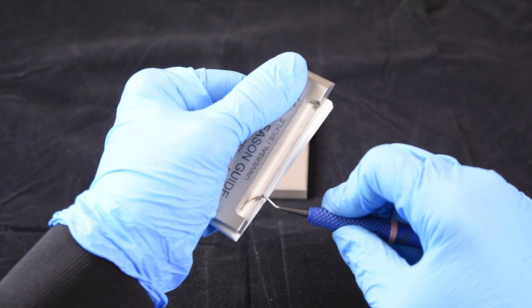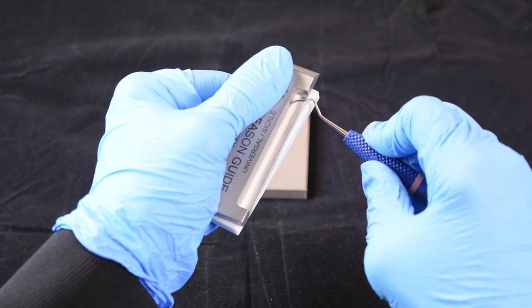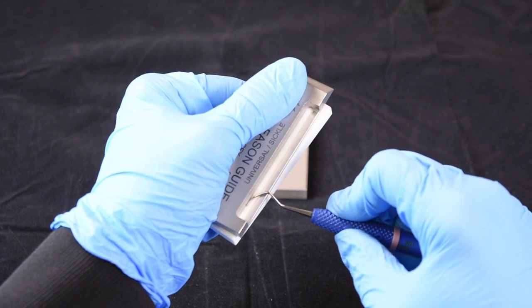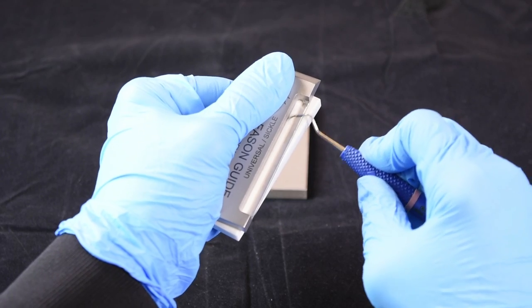Nice even pressure against the back, as well as the rest, never bringing your terminal shank off of the rest.